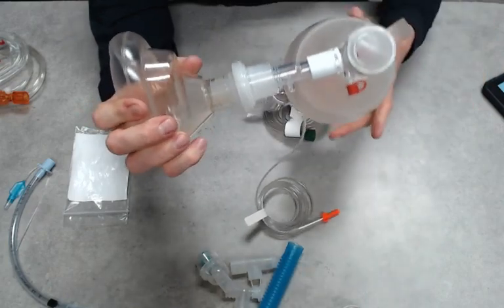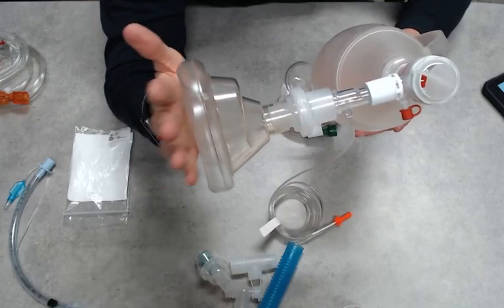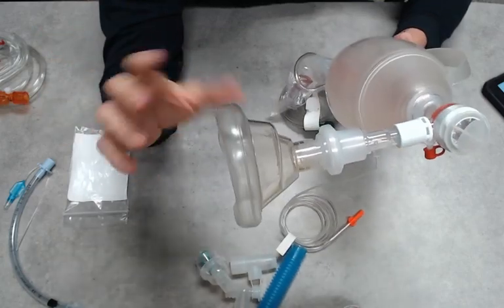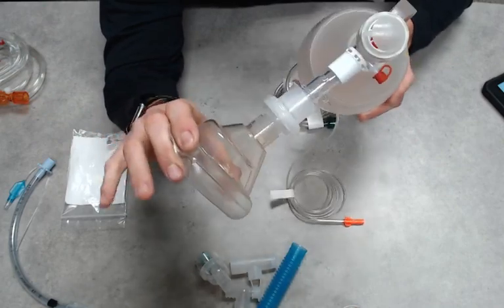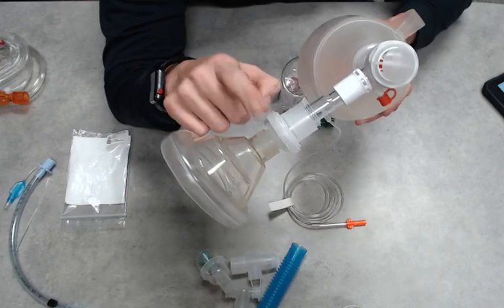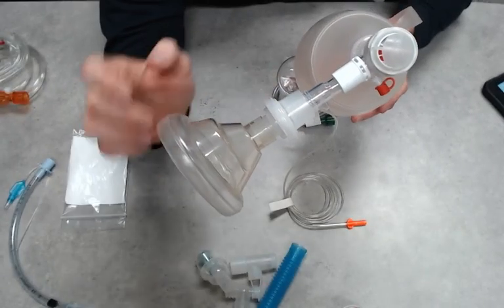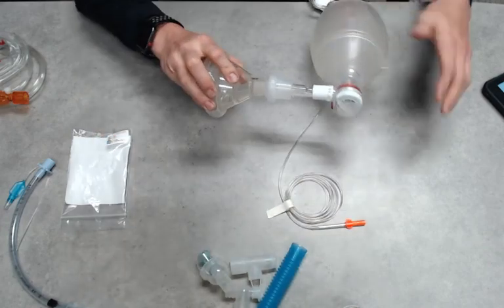Now for a BLS airway, I understand that we're probably going to be breaking the seal quite often, especially if we're not really paying attention. I would recommend do the best that you can to hold that seal and maintain it, so that way when we are ventilating our patient, we have some kind of protection with this filter in place, as well as we can still monitor our end-tidal.